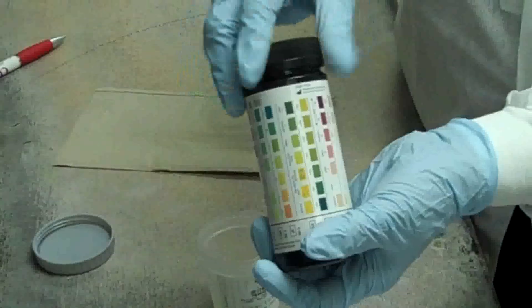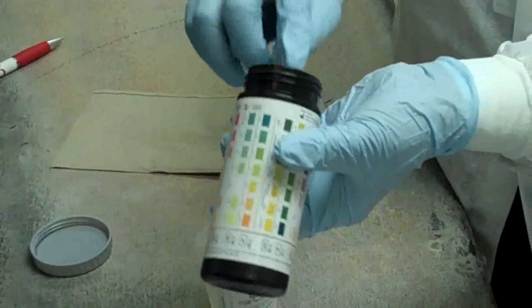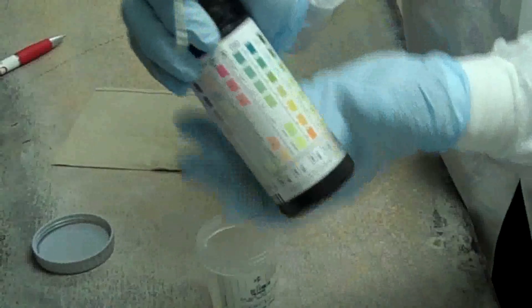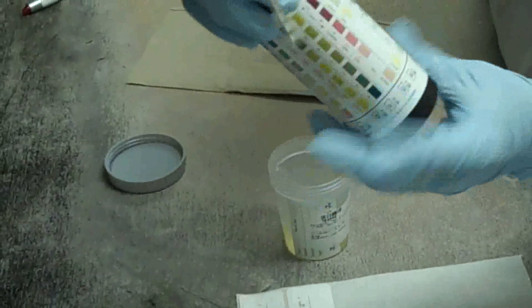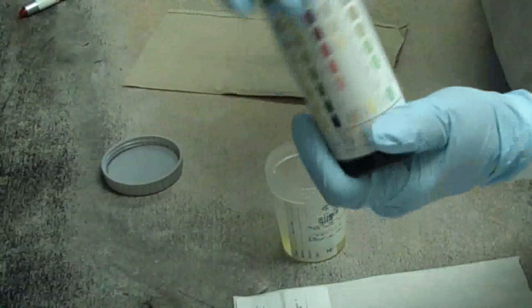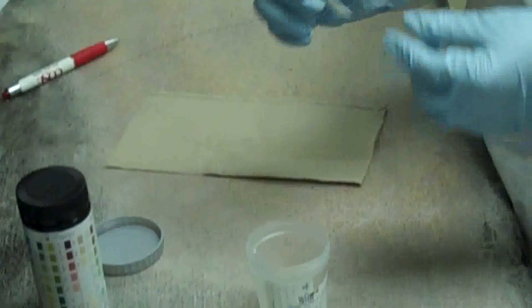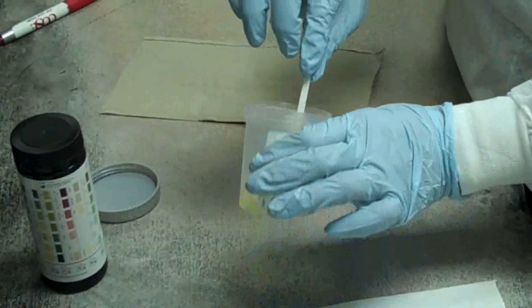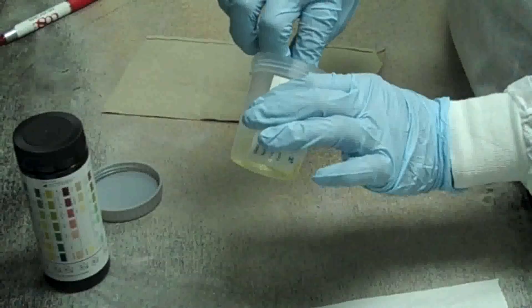Open reagent strip. Close bottle tightly immediately after removing strip. Dip strip into patient specimen wetting all pads.